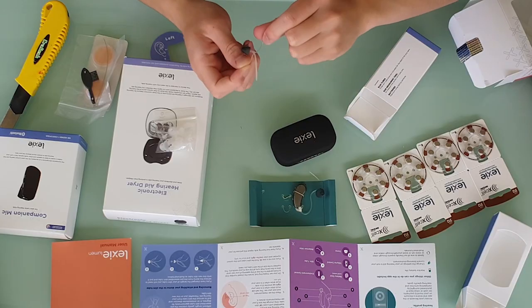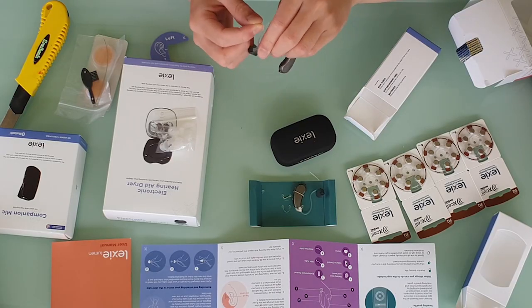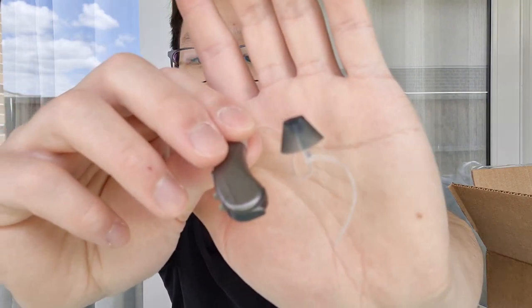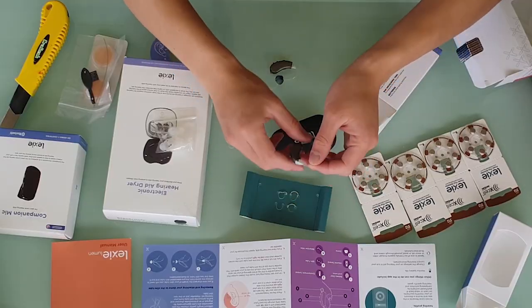Out of the box they come with some tulip domes, which look like a medium size — some medium tulip domes. I think that's really, really helpful. I'm really excited to put in some batteries, go through the app setup, and see how they work.